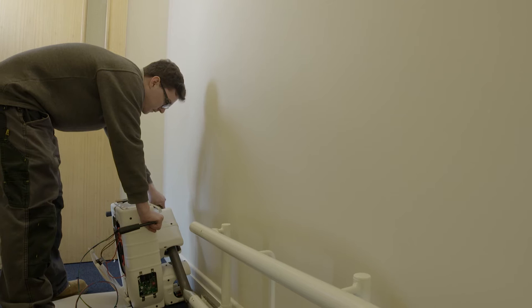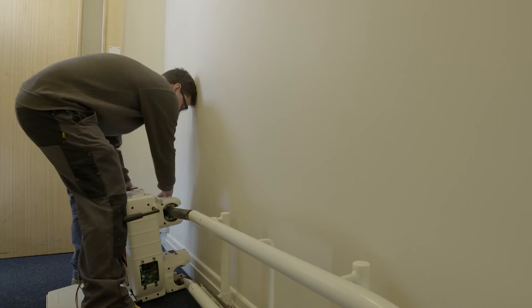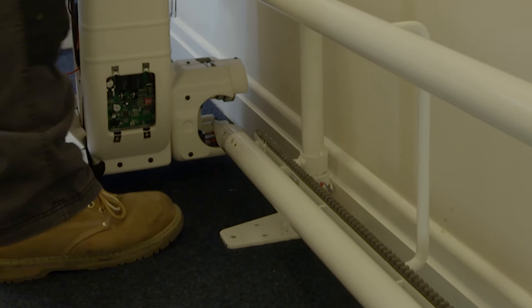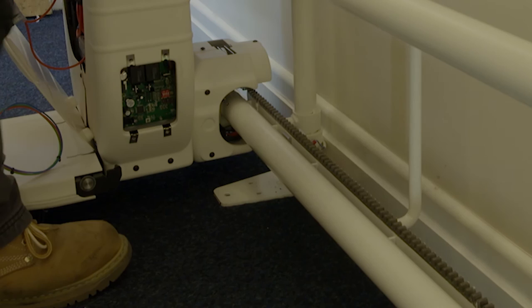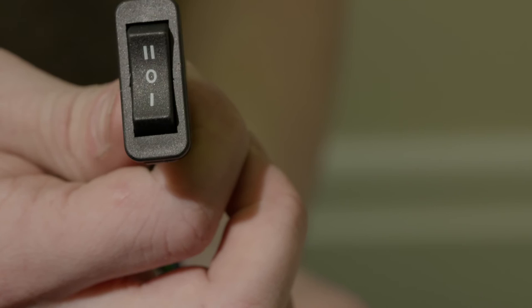At the top of the stairs, lift the carriage with the loading strap and insert the loading bar into the top rail tube. Slowly run the carriage along until the small cone is through the bottom skate. Once the carriage is securely located on the rail, it is safe to let go of the loading strap.